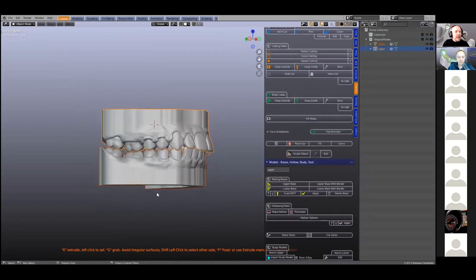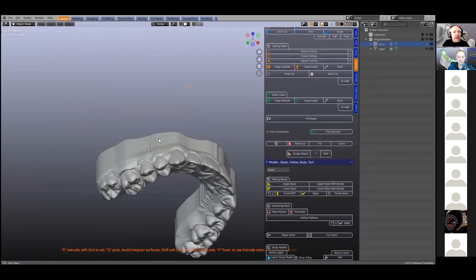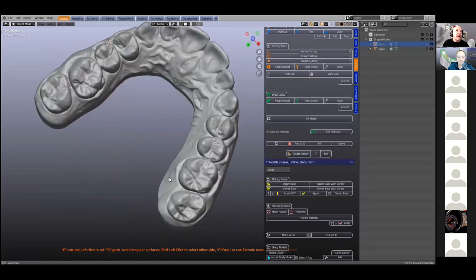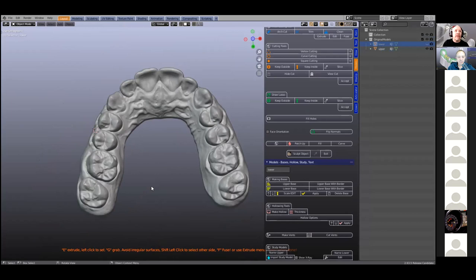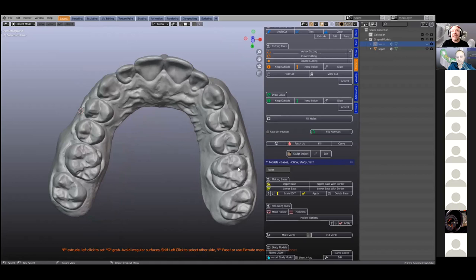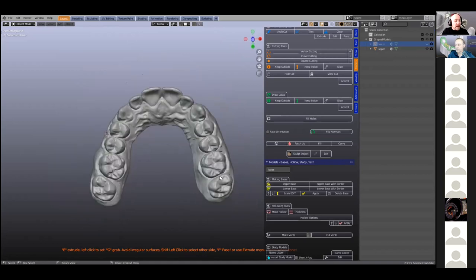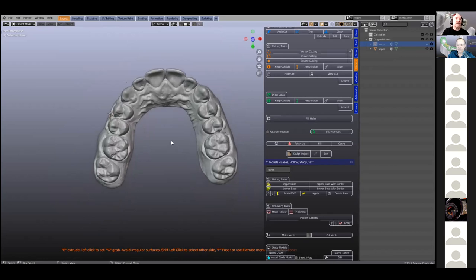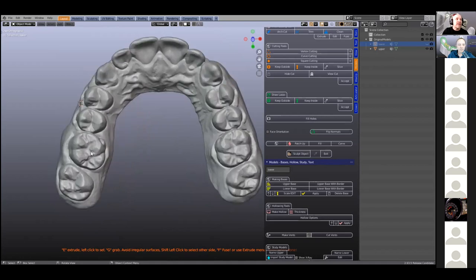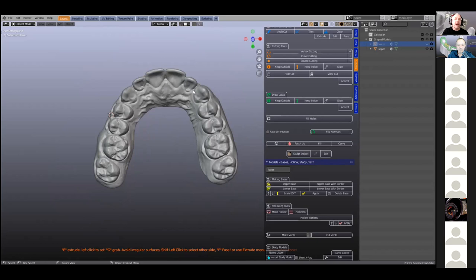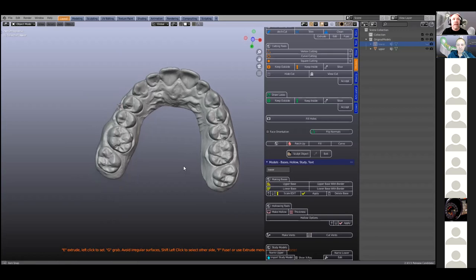I'm just going to open the file where we have already made the model bases. Now the reason why I chose this one is because the teeth are actually quite nice if you look at the anatomy of them. So if you do make one, choose one where you've got some nice teeth — we don't want to replace worn teeth on a patient. When you're choosing a scan, you don't particularly need all the teeth to be 100%. We're going to just pick out the teeth that we want to use. Bear in mind we're going to do a lot of mirror imaging, so we only need a quadrant. We're only going to cut out a quadrant, not each and every tooth. That's important to understand.